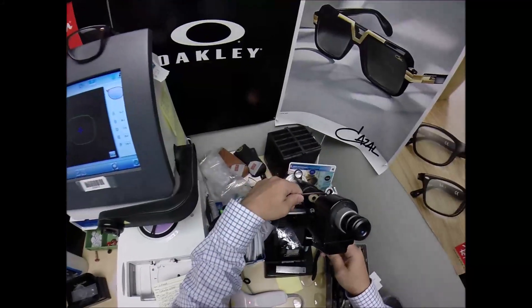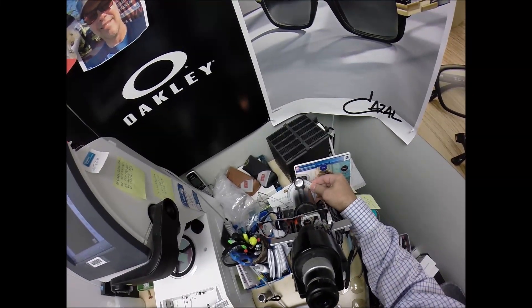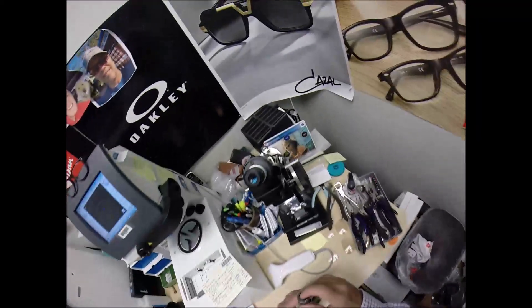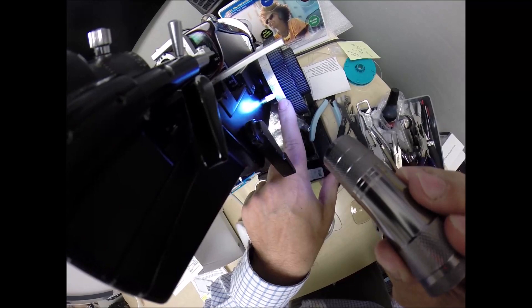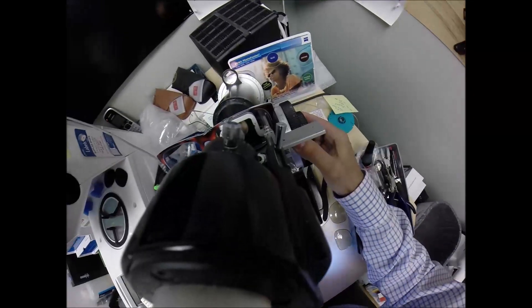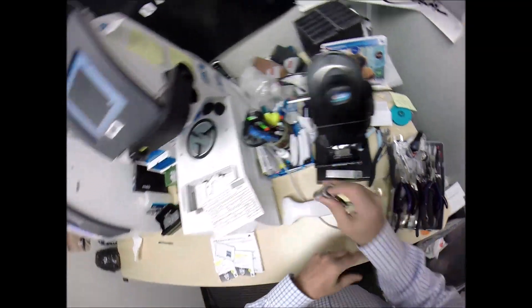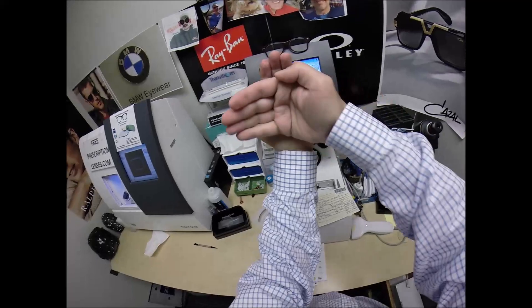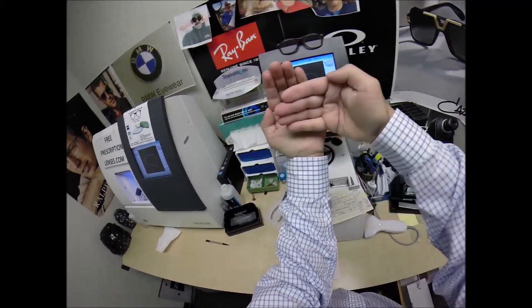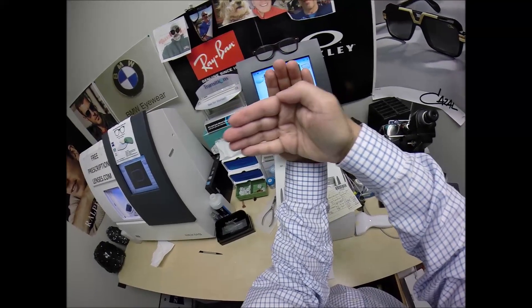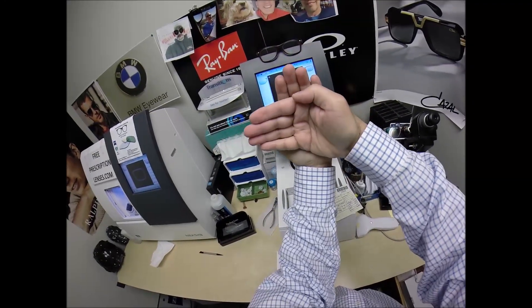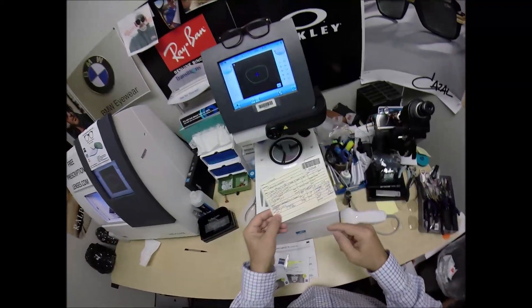Press down at the nose, it snaps right in. Take the block off, pull the sticker away, make sure it goes in the correct side this time. Come down here to the lensometer, put it in over that black dot, spin the fine-tune knob to 33, read the power and I'm getting minus one and a quarter going away from one towards two. Now you have two steps of astigmatism correction and now we're at 175, one tick mark away from two. That's because you have a minus one and a quarter this way, a minus 50 here, and it's how we line there's two curves, it's always 90 degrees apart. X meridian and actually I think this is the X meridian, this is the Y meridian and we turn that fine-tune knob to 33 to make them nice and crisp.